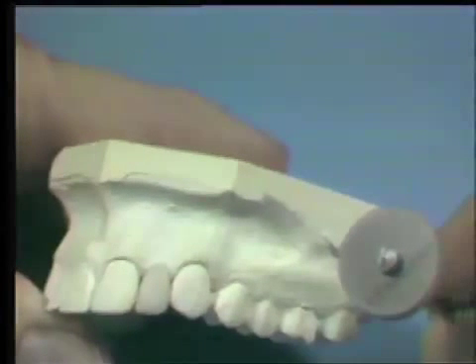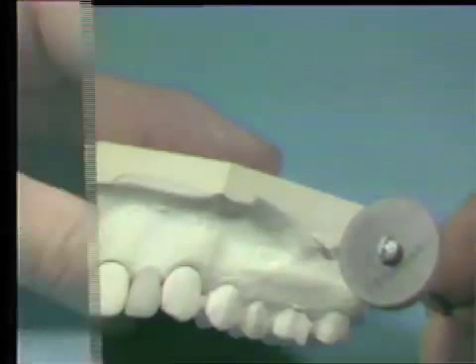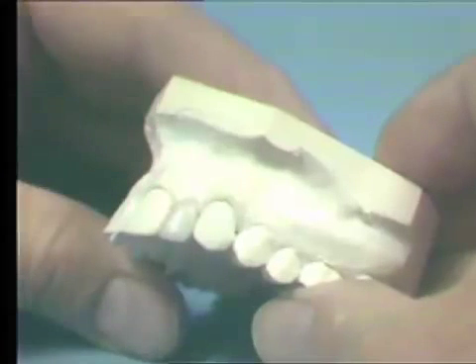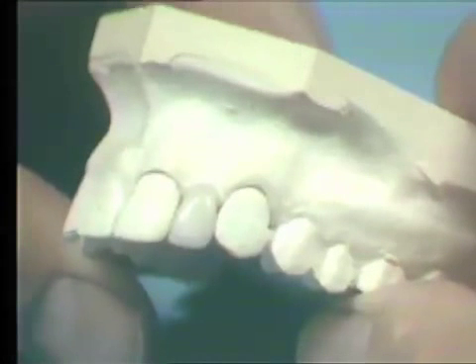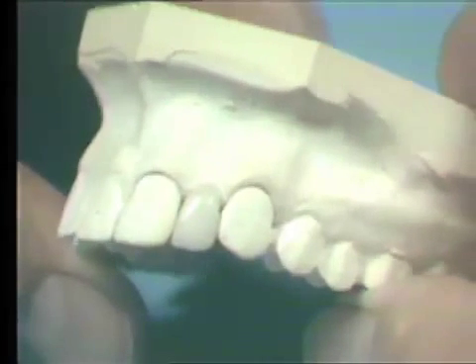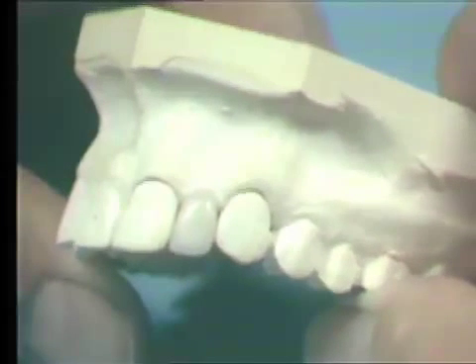The polishing sequence has started with a standard grit rubber wheel, progressing to the final finish with the Ultra True wheel. We have developed some surface undulations to complement the adjacent teeth. The incisal edge has been contoured and the pontic well adapted to the soft tissue. The next step will be to prepare the pontic for stain application.